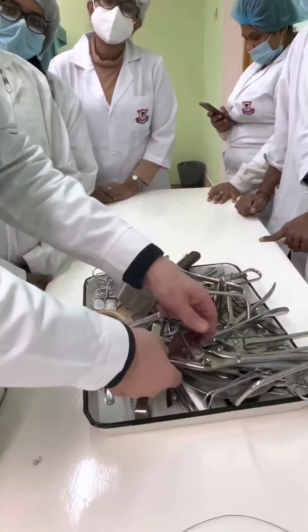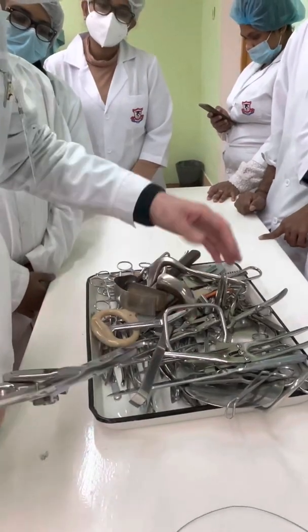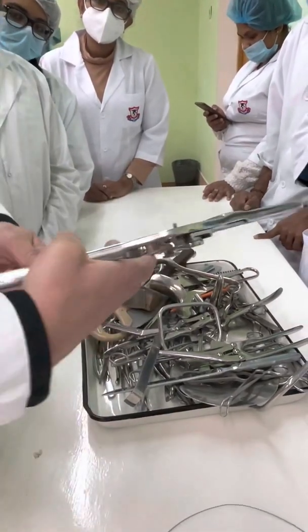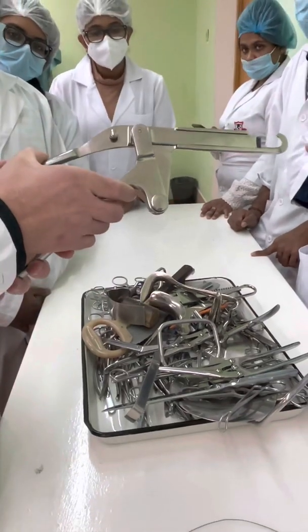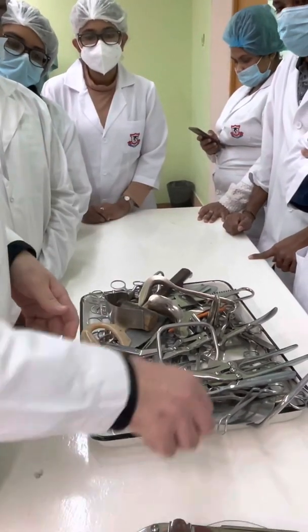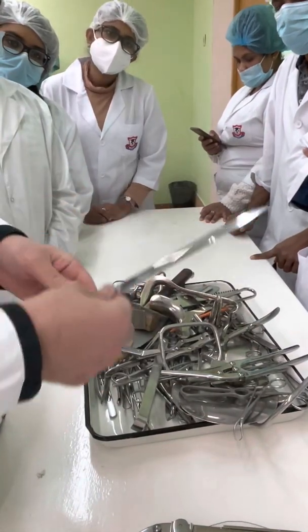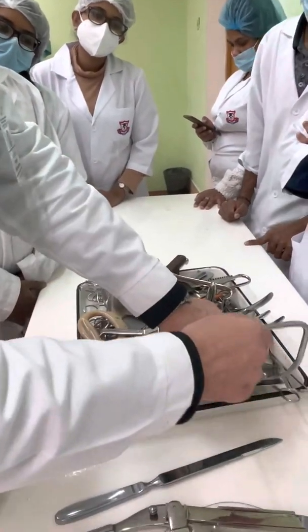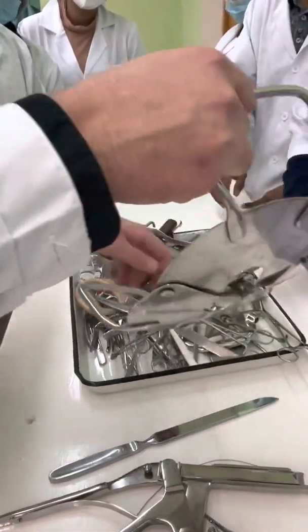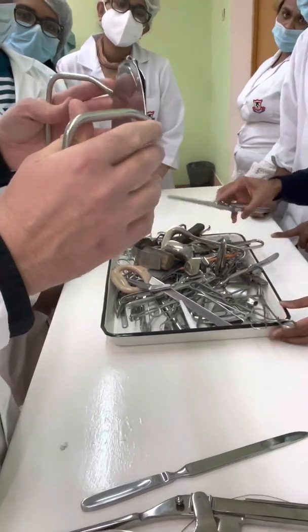Next, a mixed set of instruments. Step by step. The rib-cutter for the first rib. Knife for amputations. Here, muscular retractor for amputations.